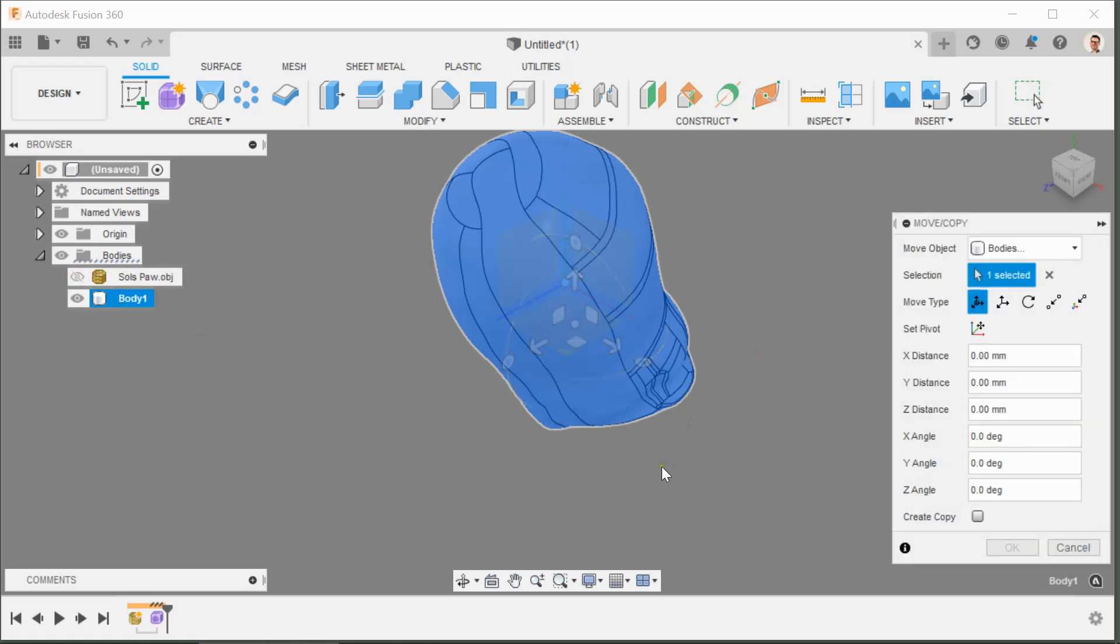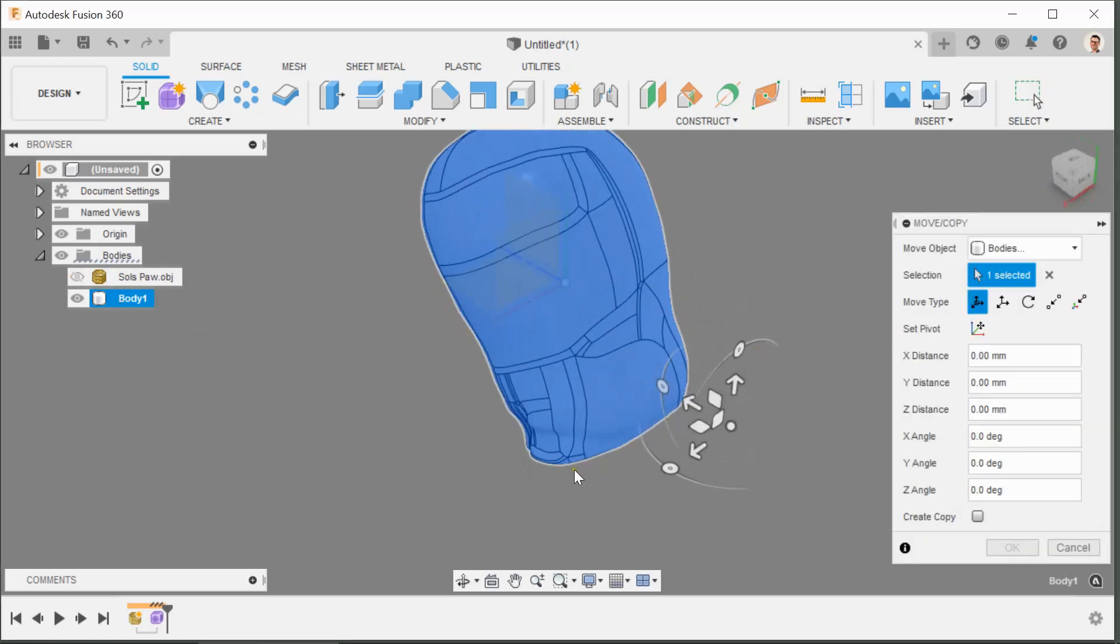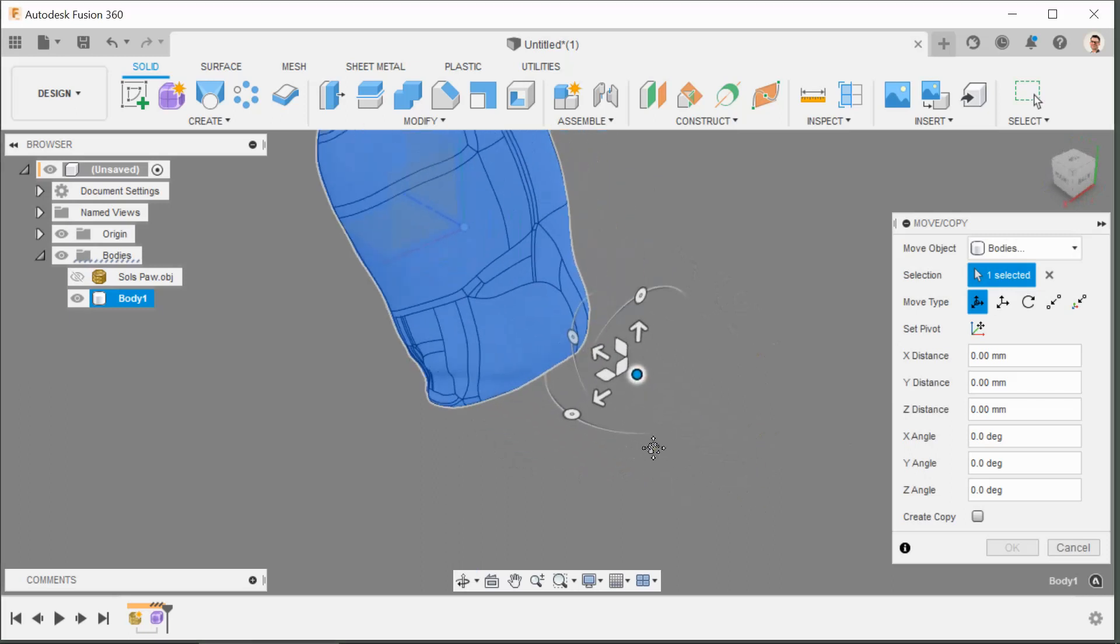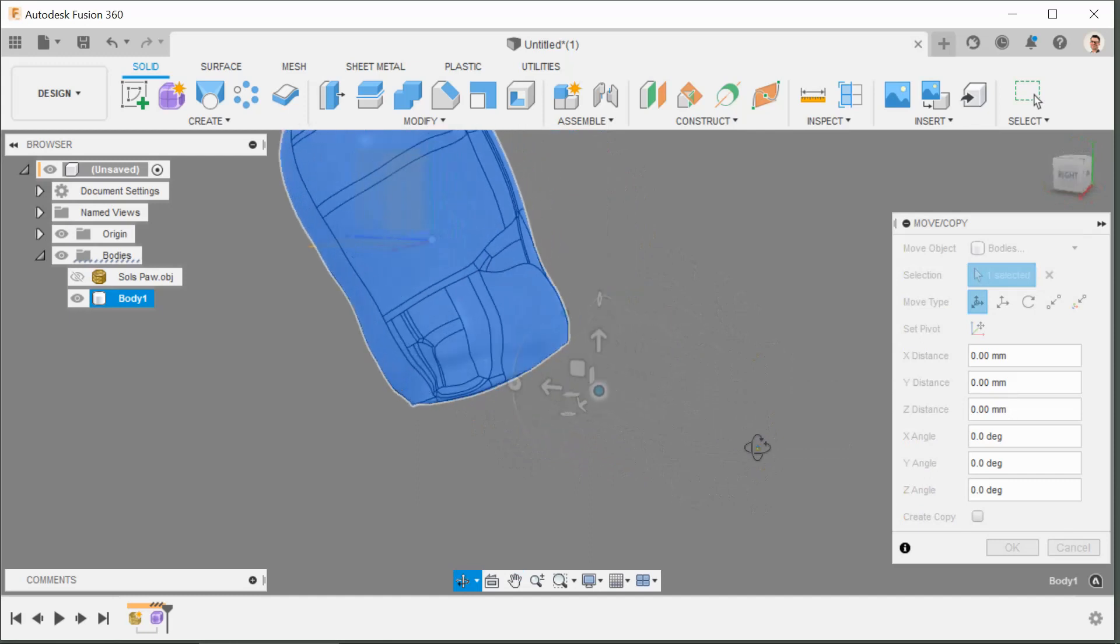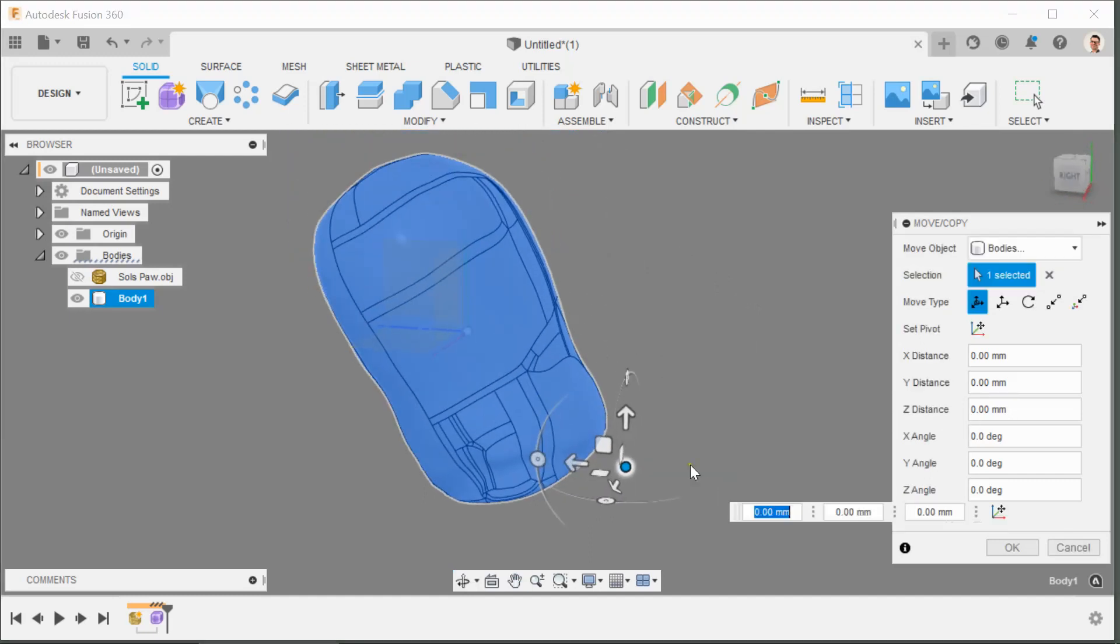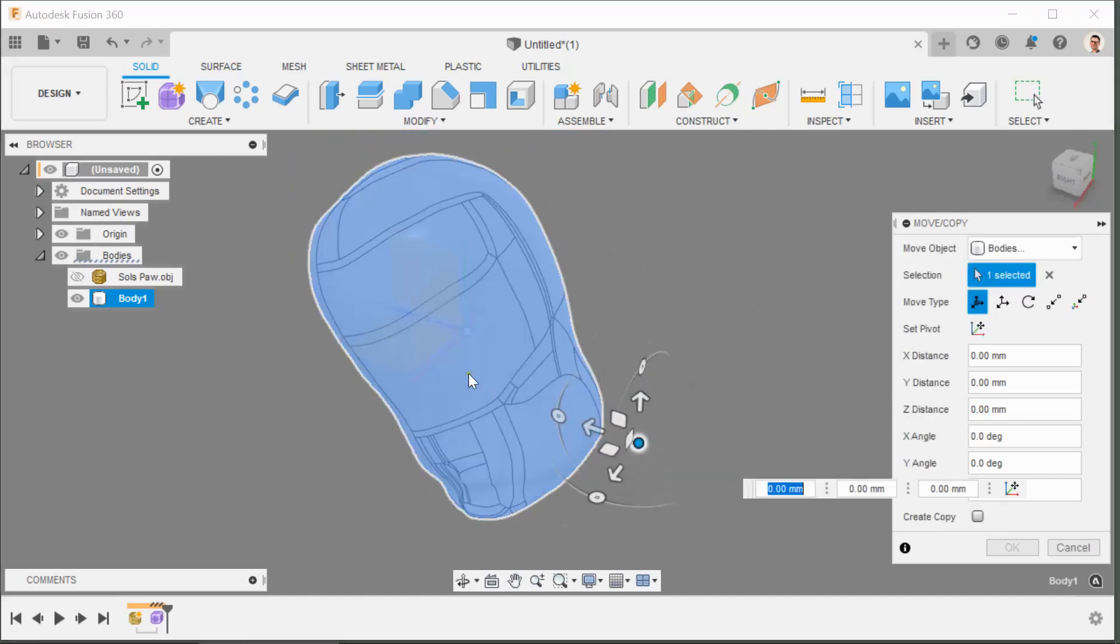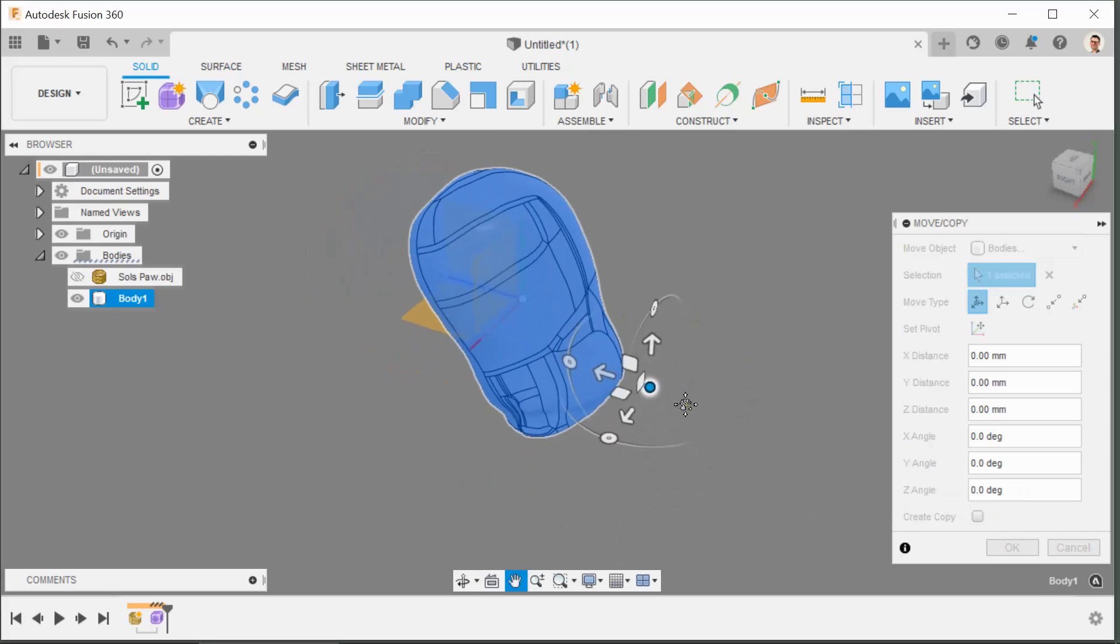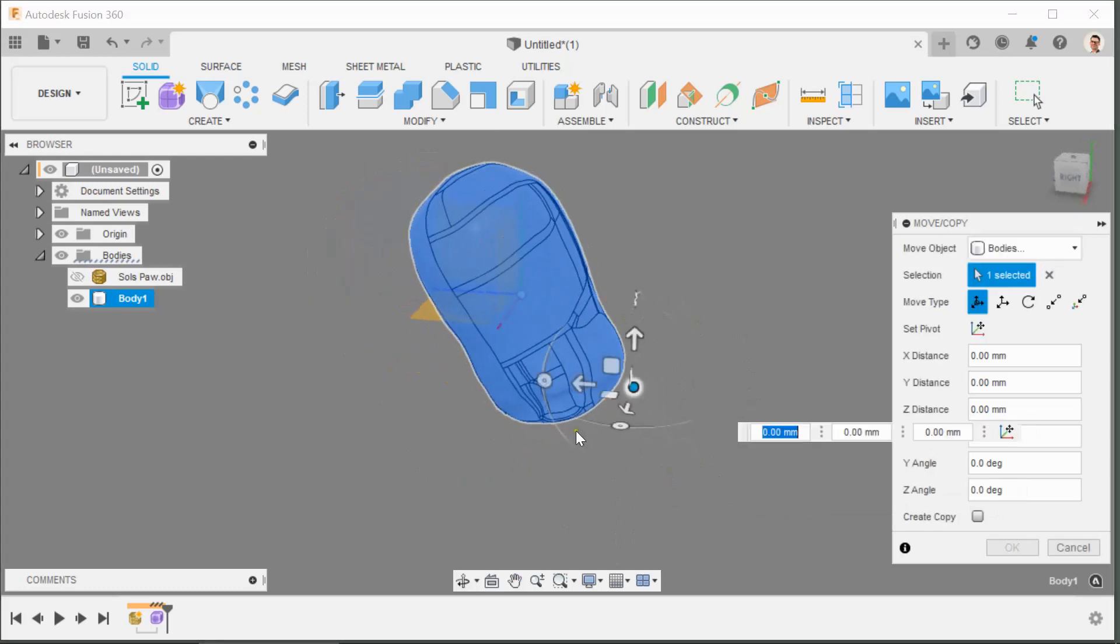So what I'm going to do is click on the body, bring the menu of all the bodies here. This is the original OBJ quad, turn that off. This new body is the one that we're going to move, so just click on it and press M for move. Now we can see that if I was to try and pivot this now it would pivot it from this point. Okay, so that's no good.